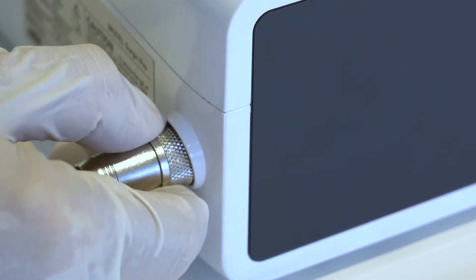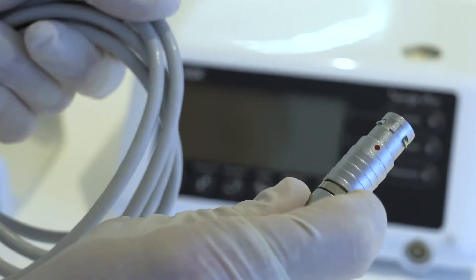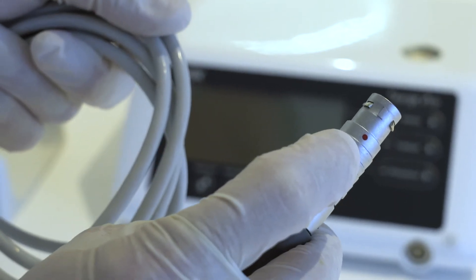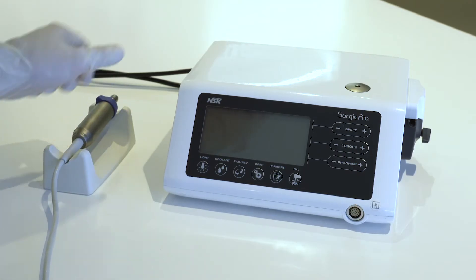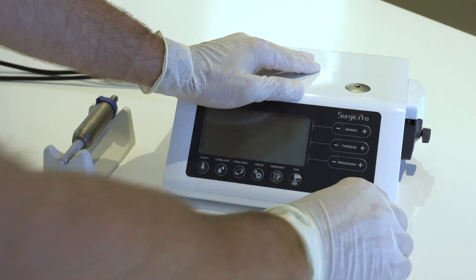The pins need to align. Install the motor cable only when the power is in off mode. Align the red mark on the motor with the mark on the control unit. Push the base of the motor cord plug into the socket until the locking joint clicks into place.